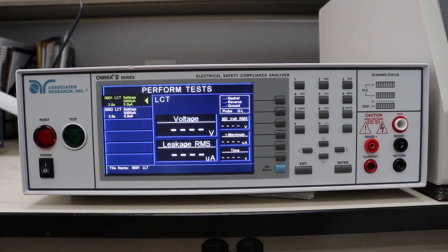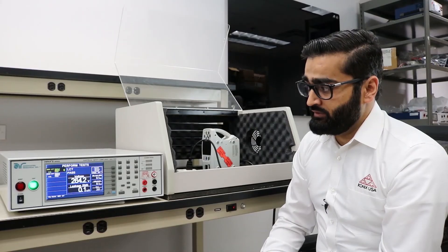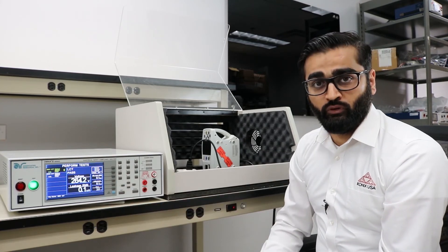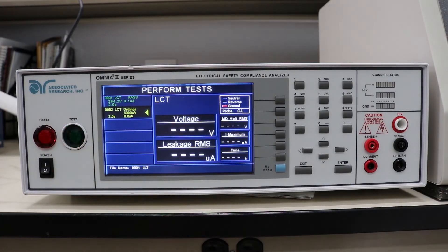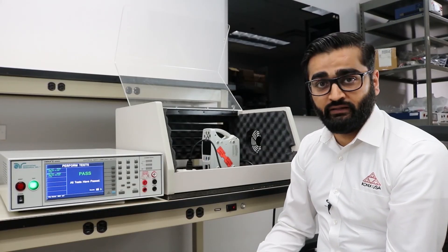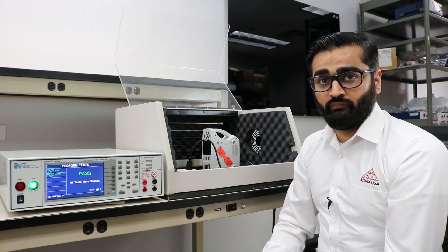Now let's take a look at how the test is performed. When running the test, the device under test gets 264 volts. No fault conditions happen, and the leakage seen by the instrument is 0.1 microamps — remember, step one was no fault, which is a normal operating condition assuming everything is in proper condition. Next, the open ground step is a single fault condition, creating 69.3 microamps of leakage observed by the measuring device for this particular device.